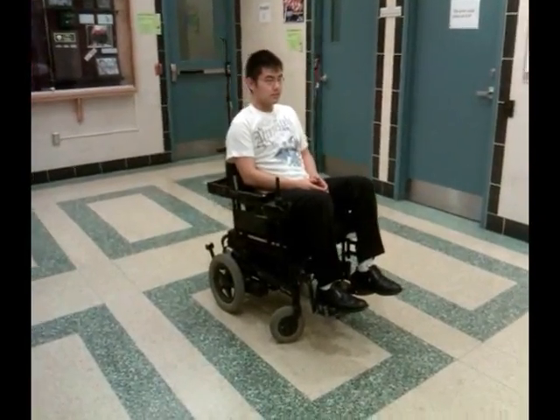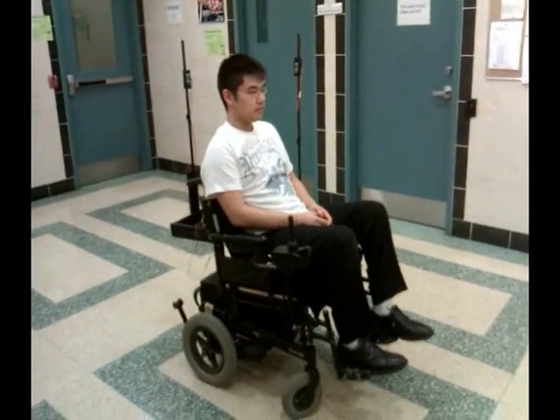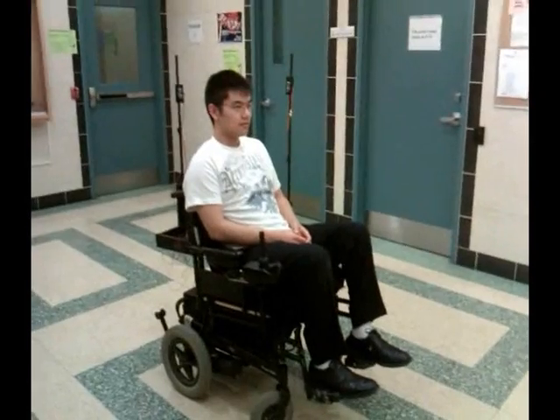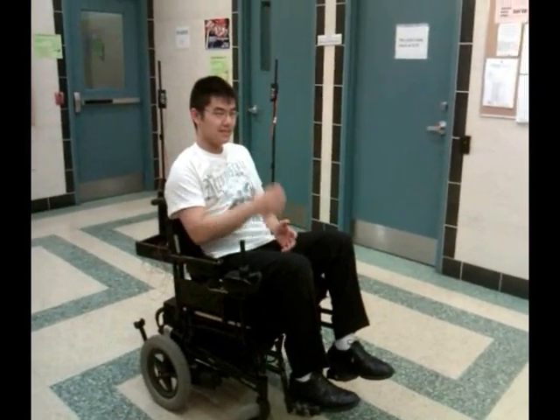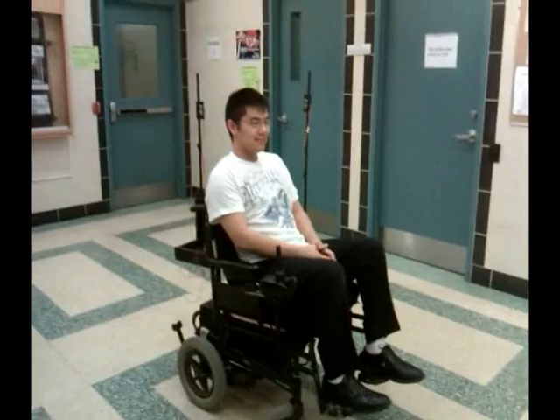This is 406 group 10, head movement control wheelchair. As you can see, Brad is sitting in the chair, not using his hands or arms, and he is going to move the wheelchair using his head.